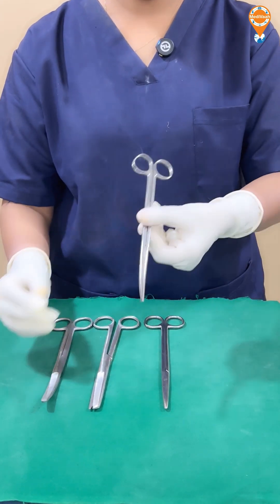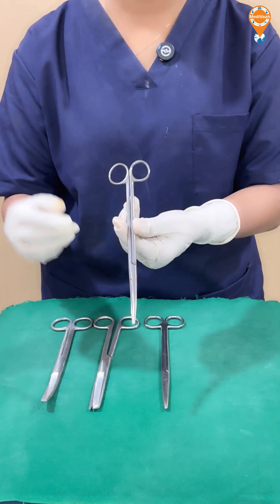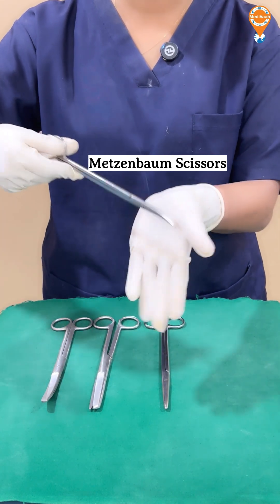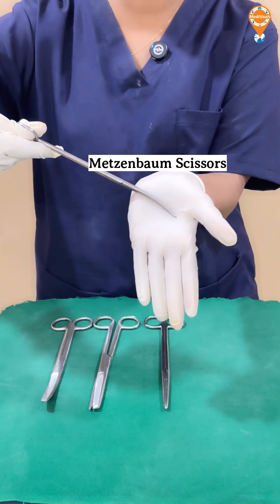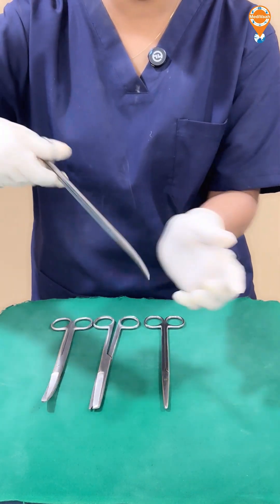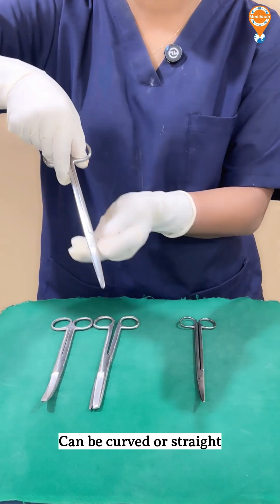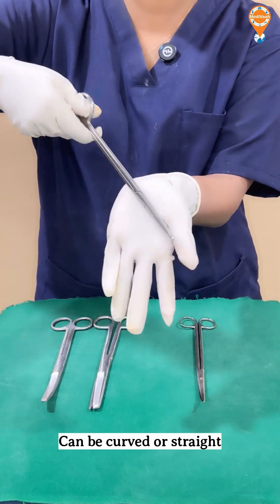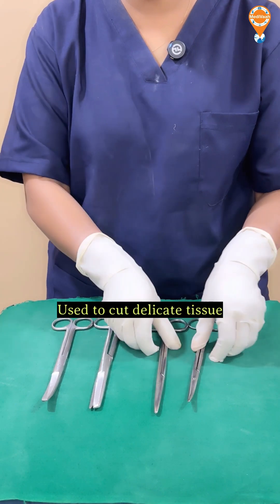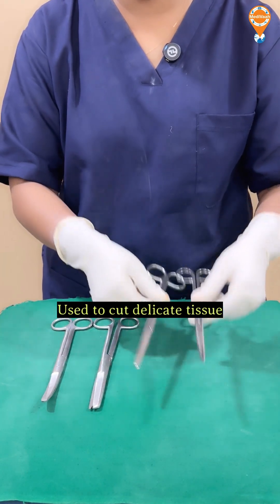This scissors is called Metzenbaum scissors, which are slender and curved. This one here is a straight Metzenbaum scissors. Metzenbaum scissors are used to cut delicate tissue.